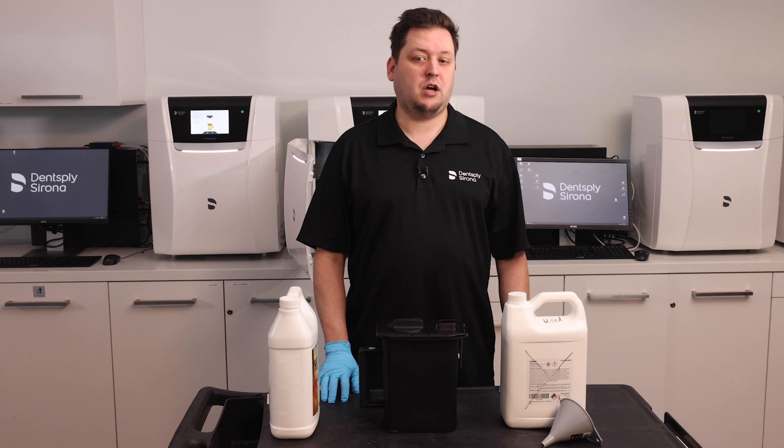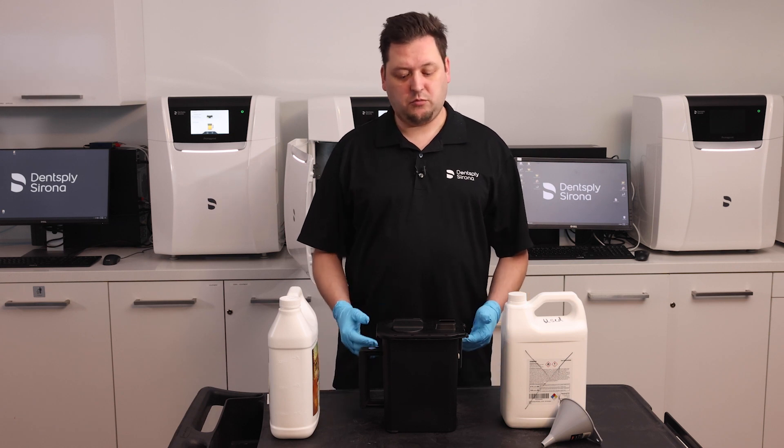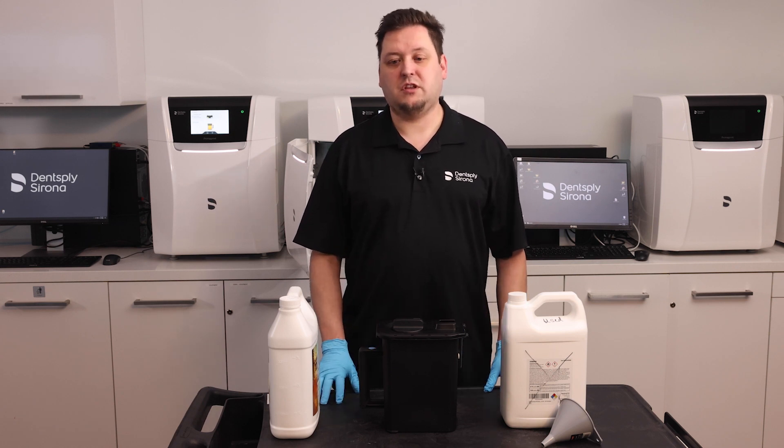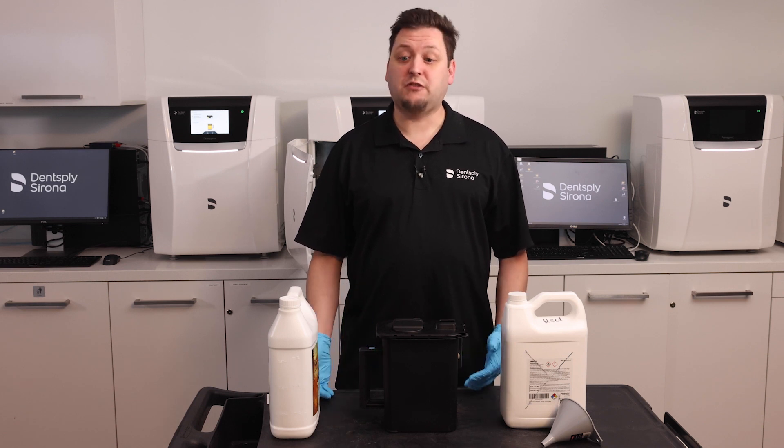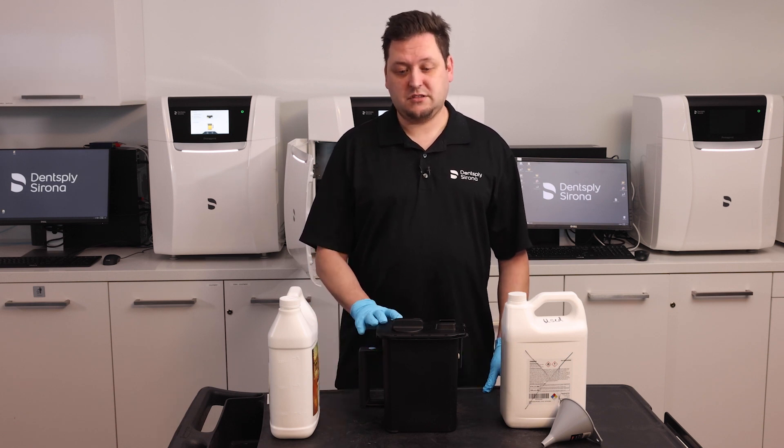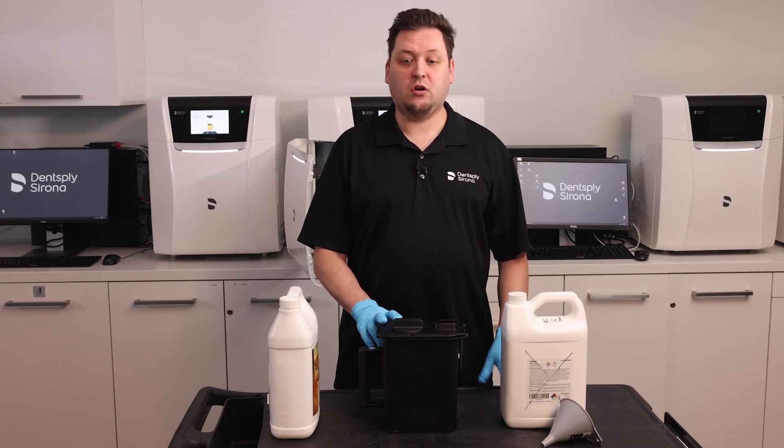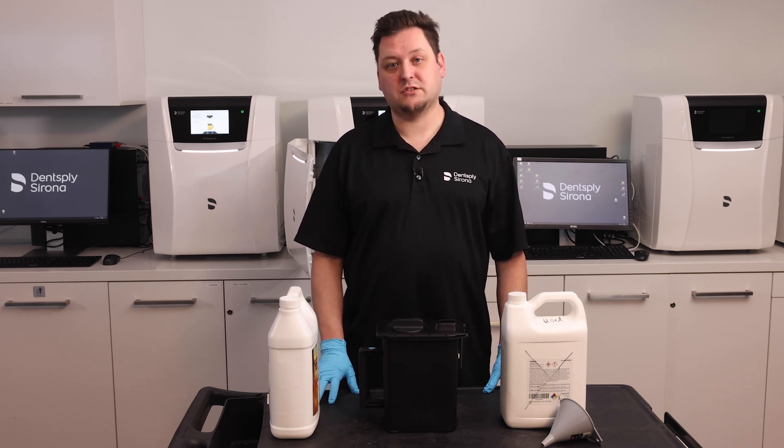Each time a printed object is washed in the PrimePrint PPU, a small percentage of the alcohol's cleaning ability is diminished. This ability is also called fitness. Once that fitness level is at 0%, the alcohol must be replaced before you can wash any more objects.